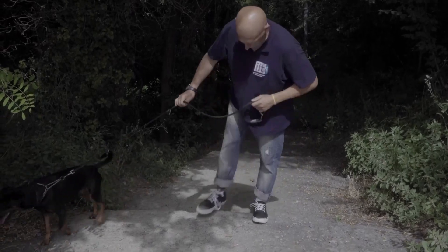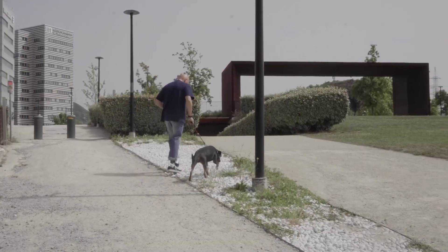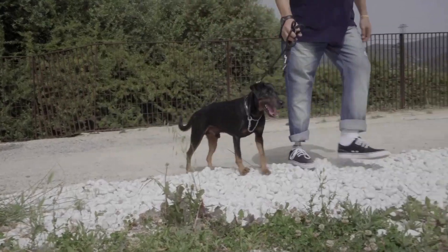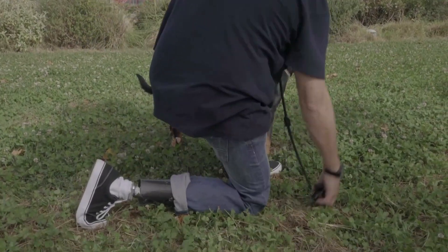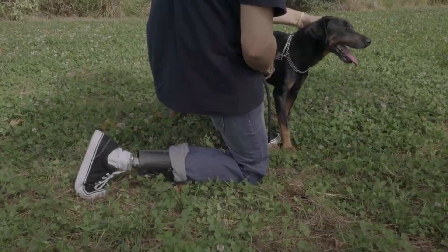The Softfoot Pro has no electrical parts and was specifically designed to help improve the user's balance on uneven and slippery terrain. Ultimately, they want the Softfoot Pro to eliminate the need to switch prostheses for specific activities.